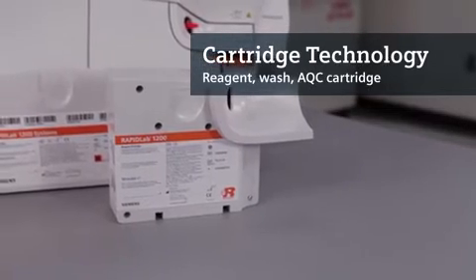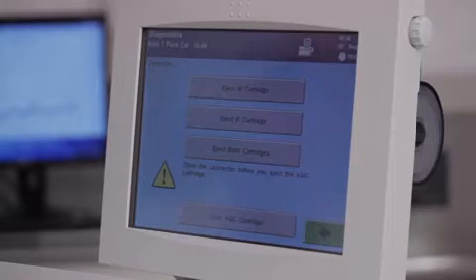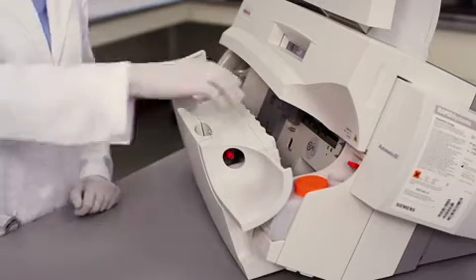The RapidLab 1200 system includes three different cartridges: reagent, wash, and automatic QC. This technology supports walk-away operation and offers more system uptime.